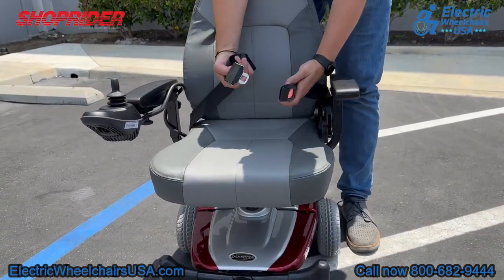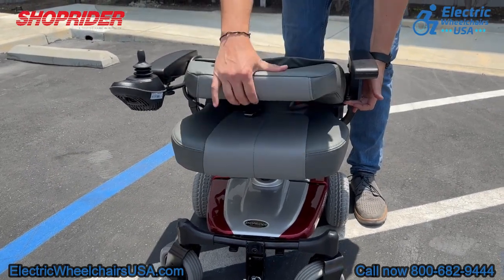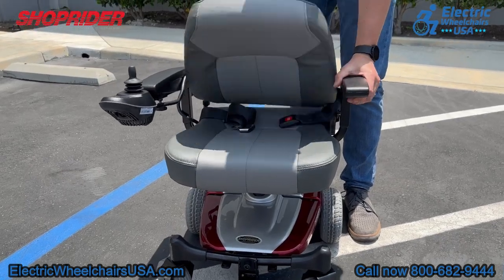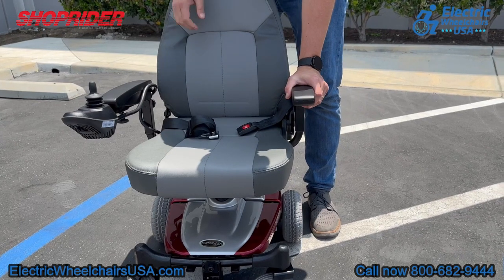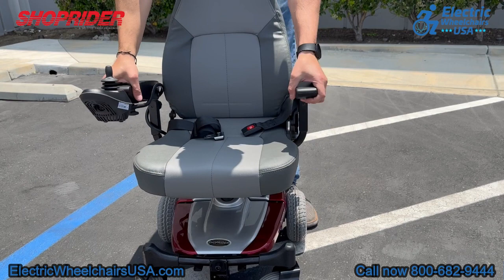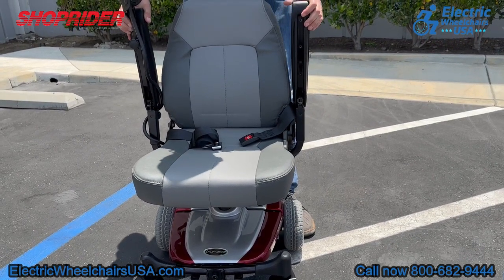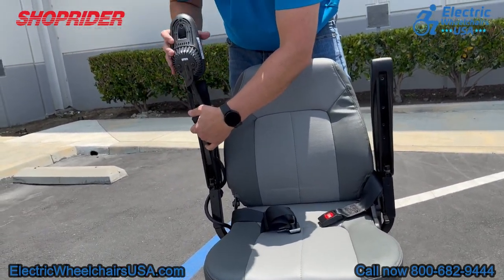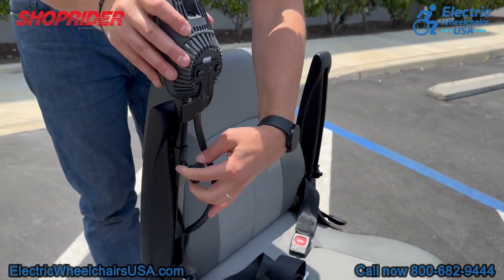The chair comes standard with a seat belt, and the seat back folds down so it's compact and easy to stow away. It also breaks apart, which we'll show in just a moment. The armrests flip up, allowing the user to get in and out of the chair more easily. The joystick can be switched to either side for right- or left-handed users, and you can adjust the joystick length so those with longer arms can get it to a comfortable operating position.